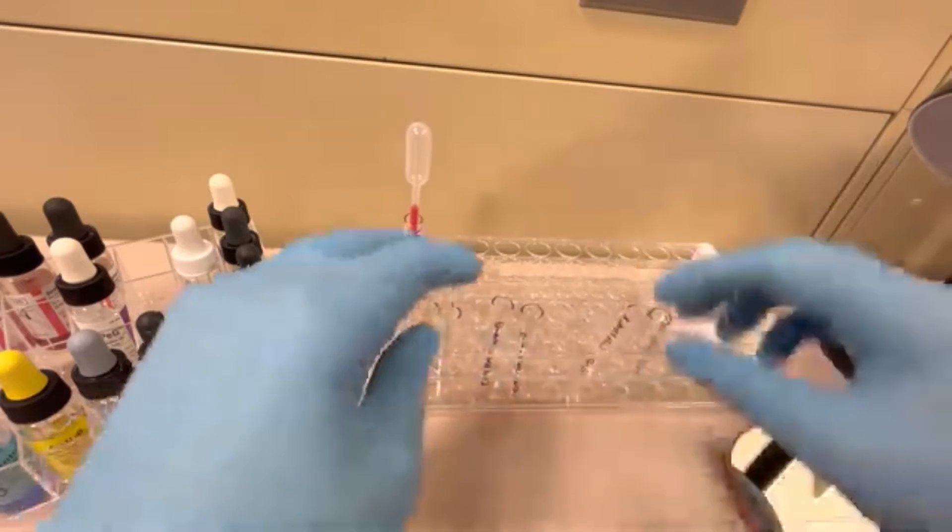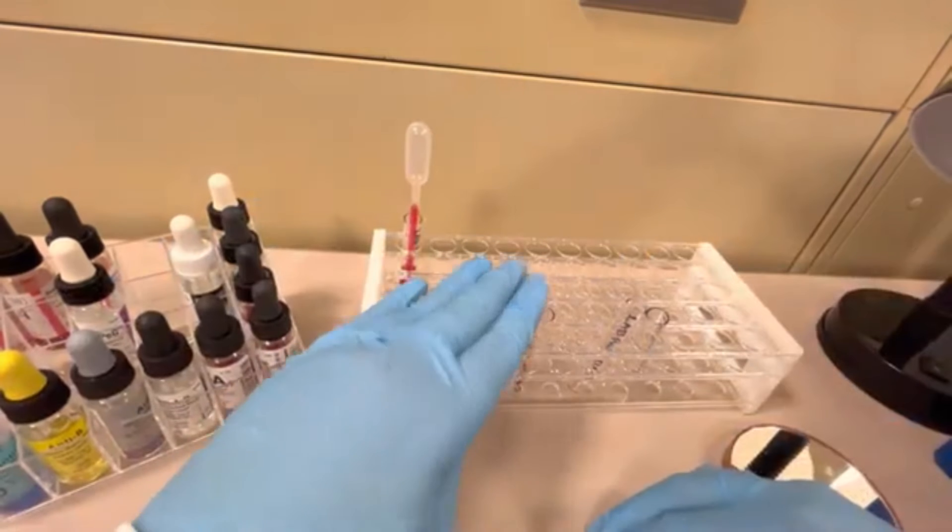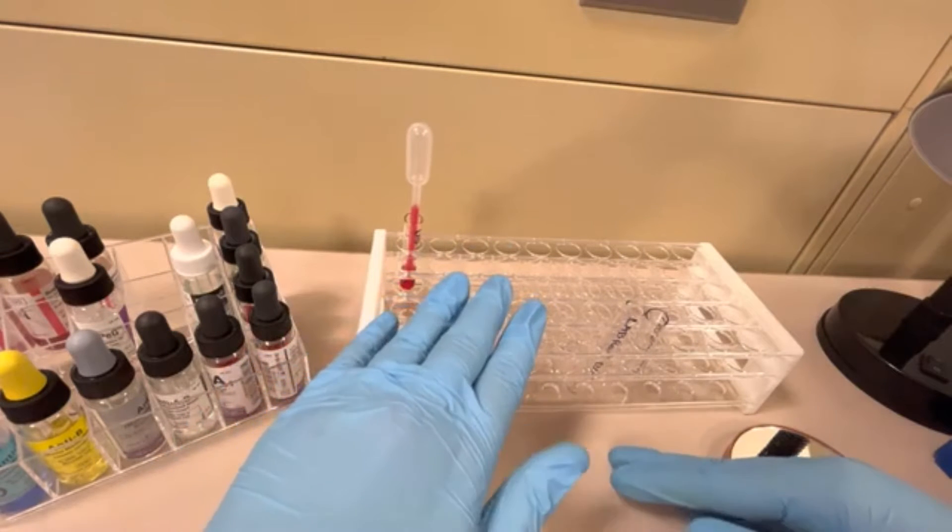If you notice here, I only have the front type. I only have Anti-A, Anti-B, and Anti-D. I don't have a back type.